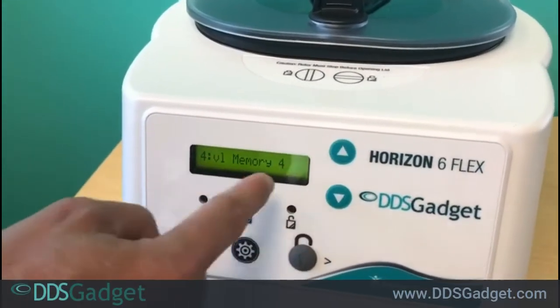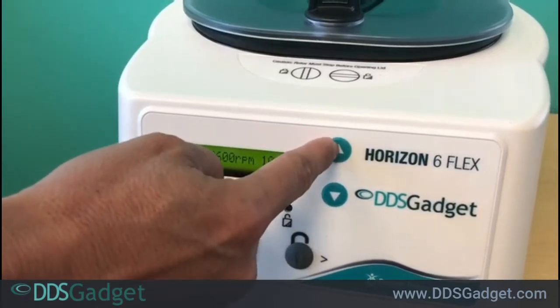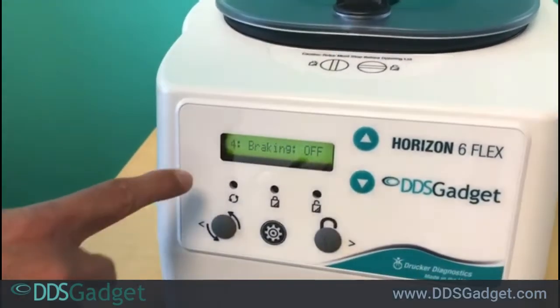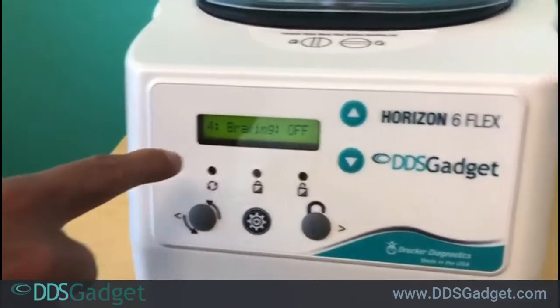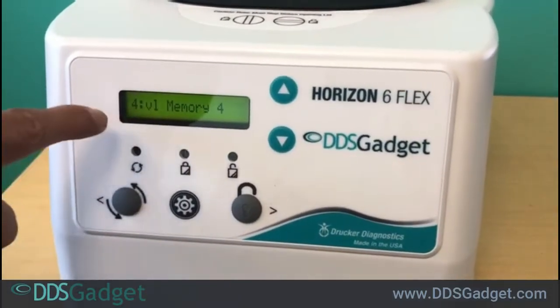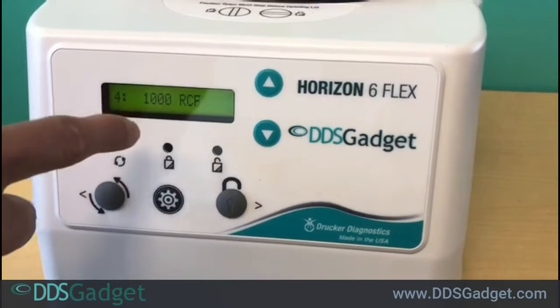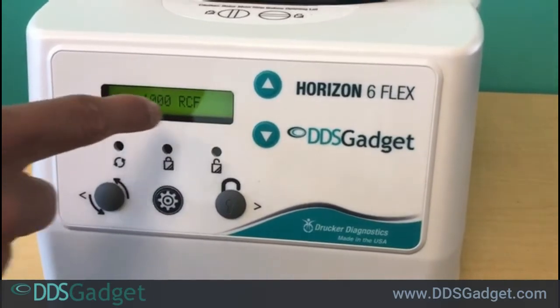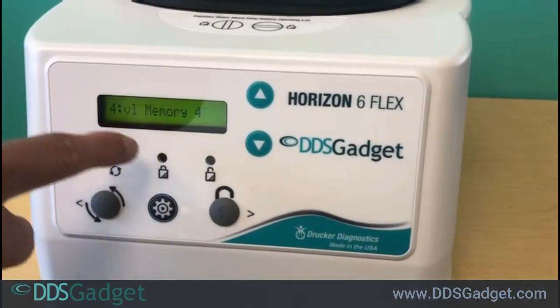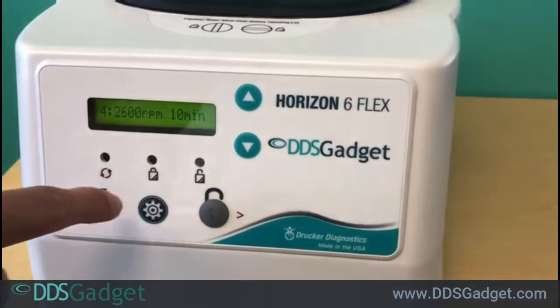Let's say number four — we can use that as the custom cycle. Then you have to wait until it flashes and you'll see it will go through what the cycle is. This doesn't mean anything as we haven't set anything yet.